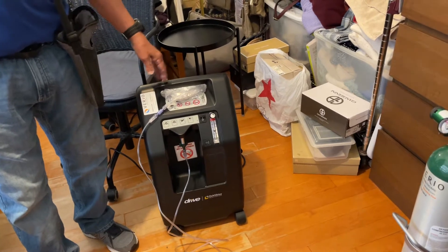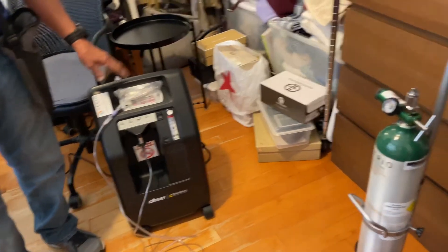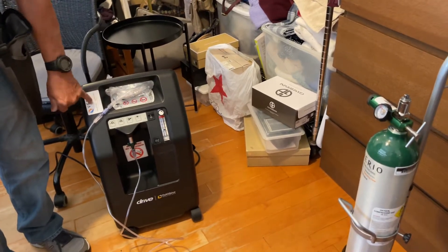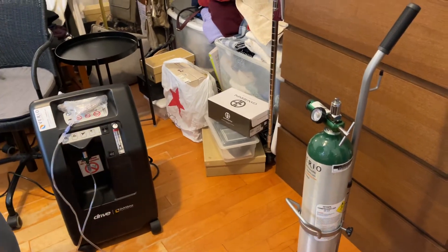All you do is turn it on and turn it off. If something is wrong with it, you'll see the red light and the orange light and hear the alarm — that means something's wrong. You need to call us. Our number is there.